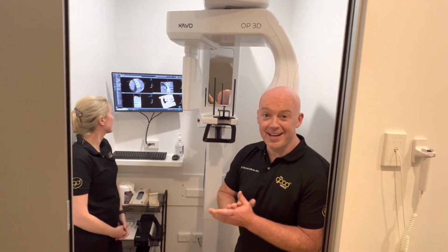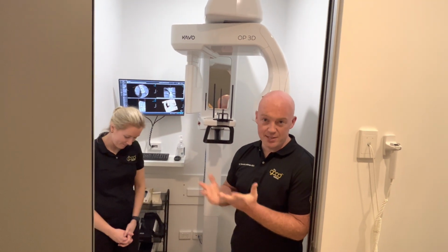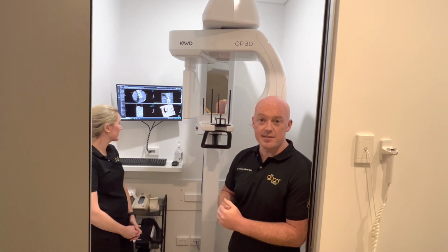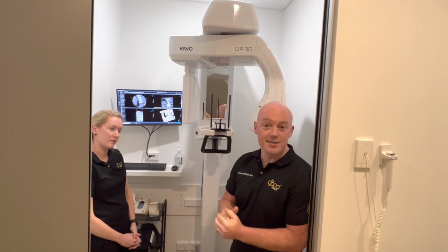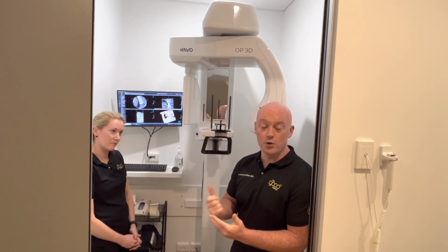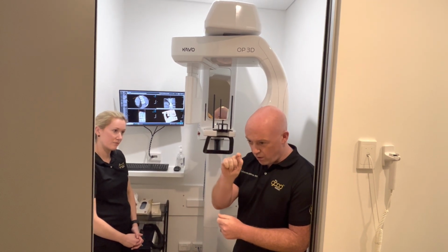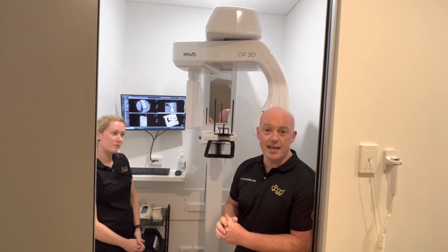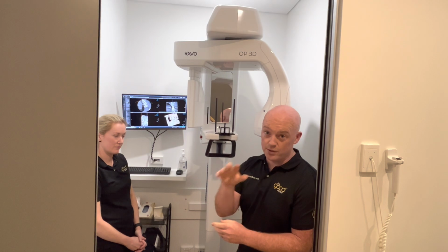Yeah, in fact, it actually helped me dodge a bullet today, Sean. I had a young lady in who needs her wisdom teeth out. I was about to suggest that she comes back in a couple of weeks to have them out in the chair. I took an OPG using this lovely machine, and I realised on the 3/8 there's a small radiolucency at the tip of the root, which spurred me to take a CBCT just to make sure of the location of the roots on that tooth.